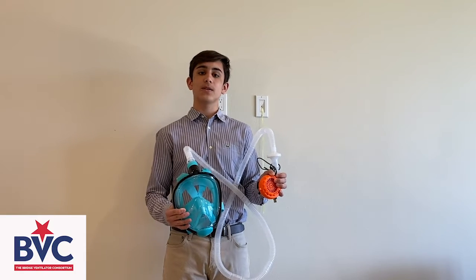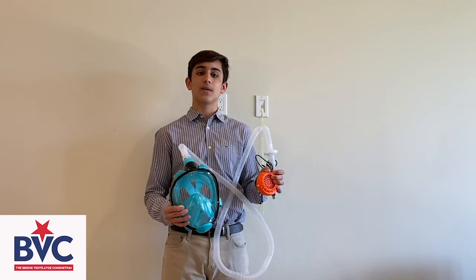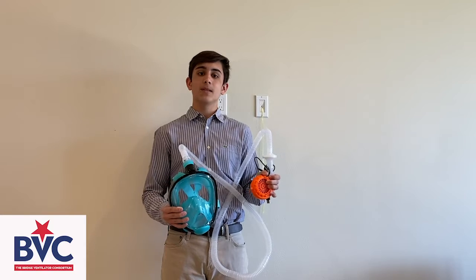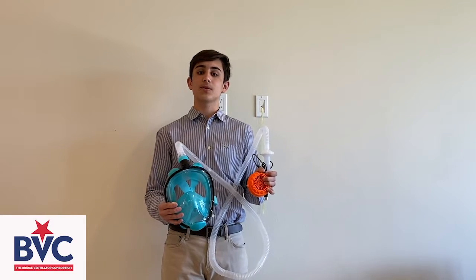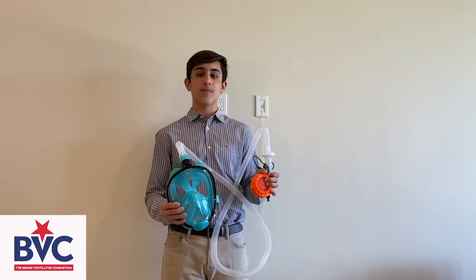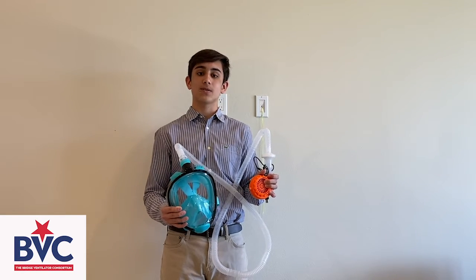As a response to the recent COVID-19 or coronavirus outbreak, myself and another student, Ms. Ellen Wong, have developed an affordable PAPR and completed early-stage development feasibility. This PAPR device is able to be constructed at a person's own residence or facility, due to the use of commercial parts and 3D printed jigs, which can be found on the Bridge Ventilator Consortium's website.